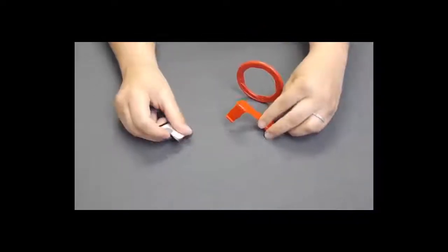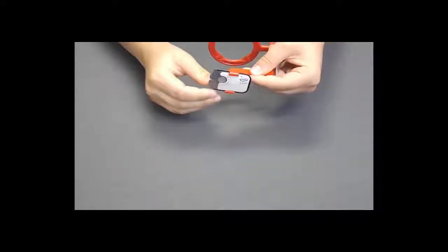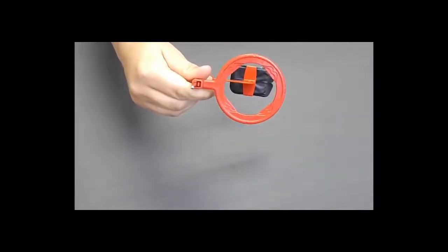When putting your phosphor plate into your bite block, make sure that you slide it in so the black side is facing your ring and the phosphor plate is centered in the bite block. When you look through your ring, think black hole.